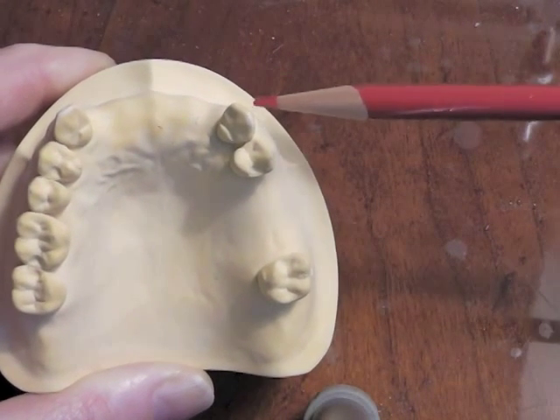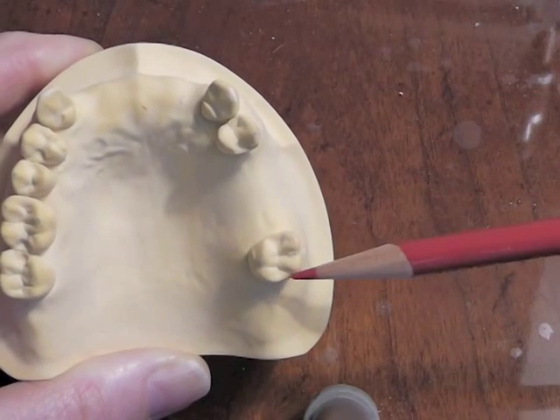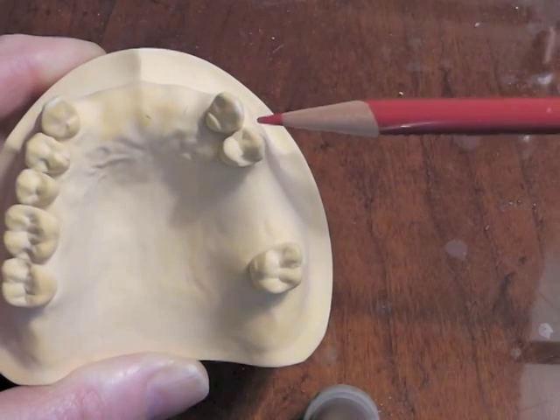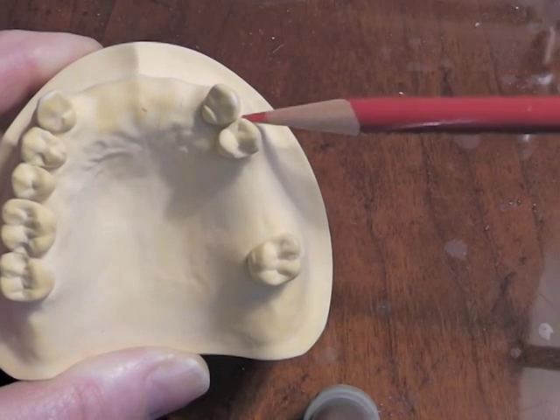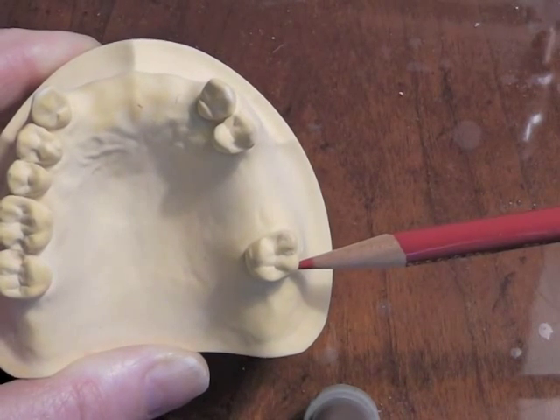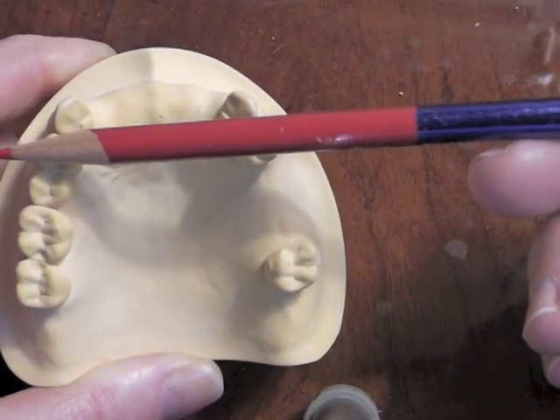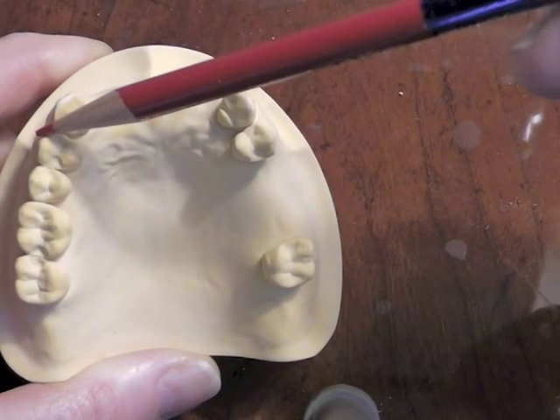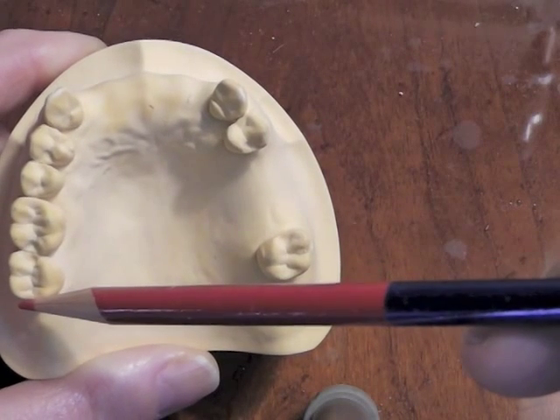We're thinking about whether we want clasps here and here, and then separate retention as far back as possible. Ideally from an aesthetic standpoint, we're going to see whether we have an undercut when we survey this cast — right here on the mesiofacial of our premolar and the distofacial of our molar. On the other side, we'll try to balance that off, looking for a mesiofacial undercut on our first premolar and a distofacial undercut on our second molar.